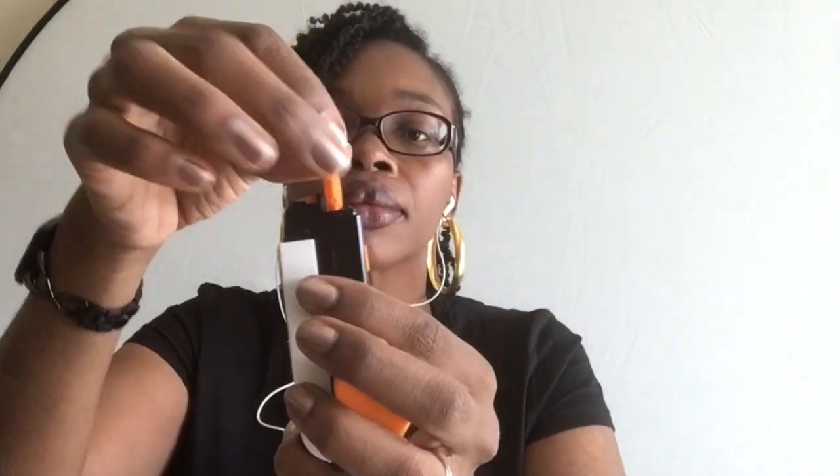Now we get to test it out. I am going to read the directions so that I do this properly. You can change the dial numbers — I don't know if you can see it or not, but I have a choice of how much I want. It's at one; I'm going to keep it at one, and if it doesn't work then I'll move it up.